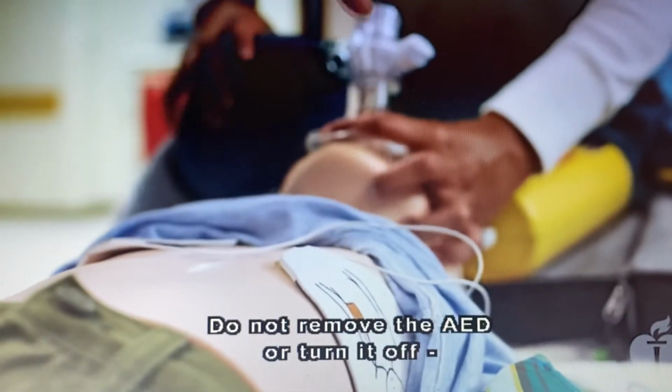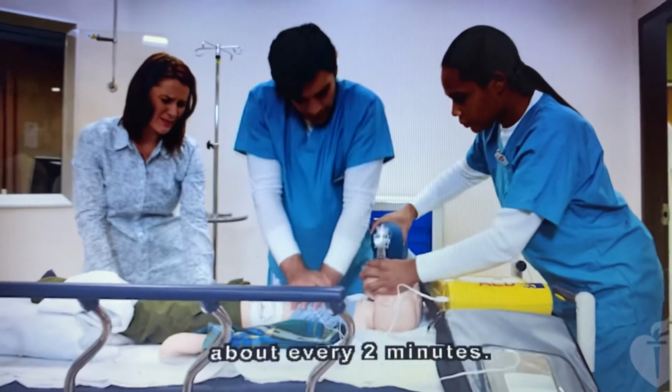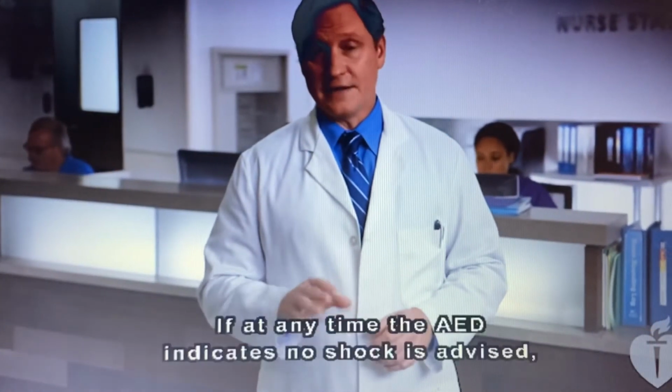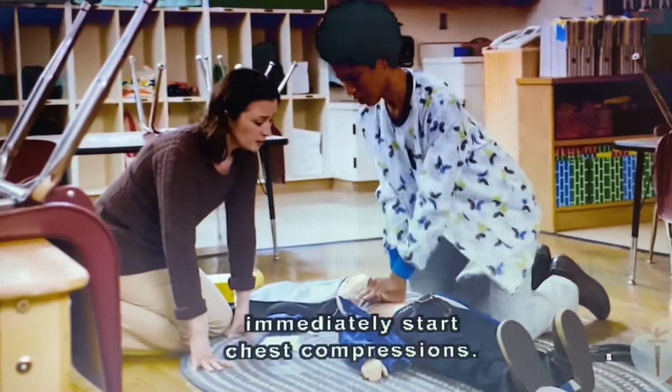Do not remove the AED or turn it off. The device will repeat the analyze and shock cycle about every 2 minutes. Follow the voice prompts of the AED. If at any time the AED indicates no shock is advised, immediately start chest compressions.